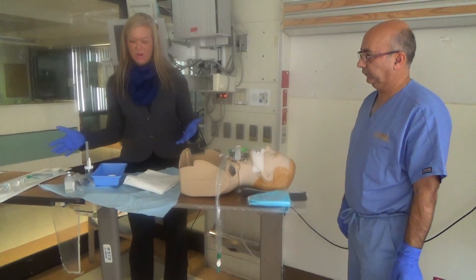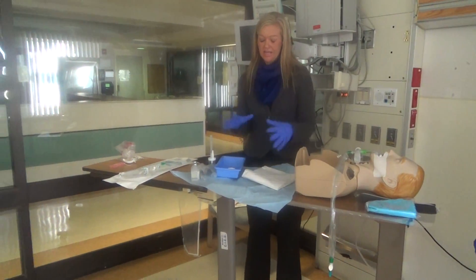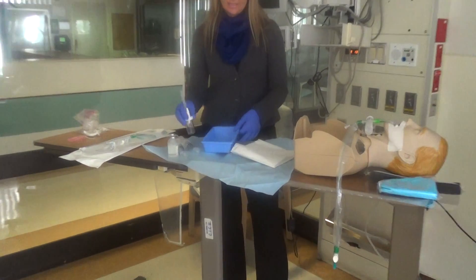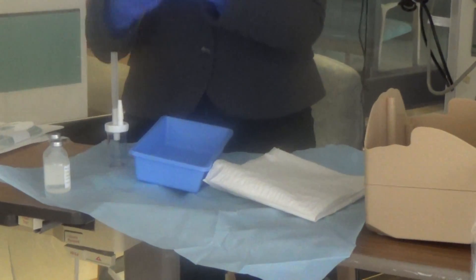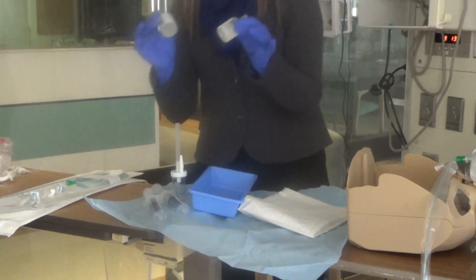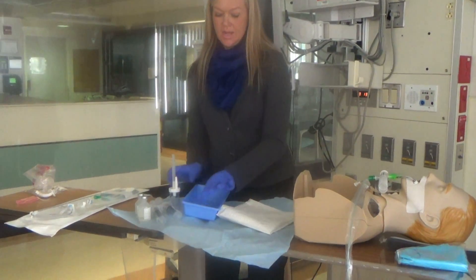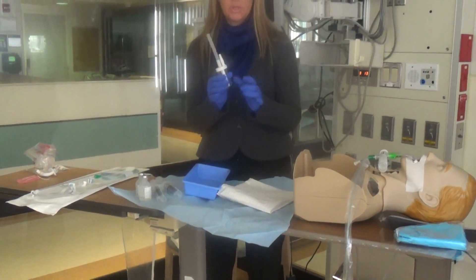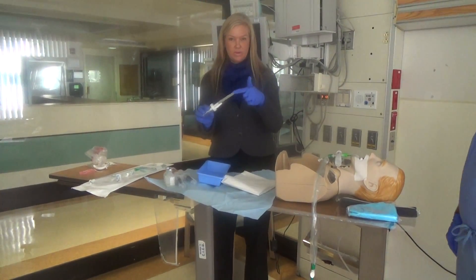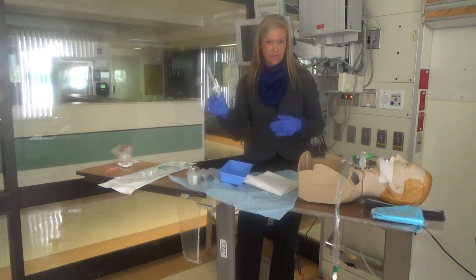I've gone ahead and opened up all of the packages. In the prep pack, you'll find two empty syringes, two full vials of saline — more than enough for the lavage — and a Lukens trap, which attaches to wall suction directly. The sample will come through the catheter directly into the trap, which we then label and send to the lab.